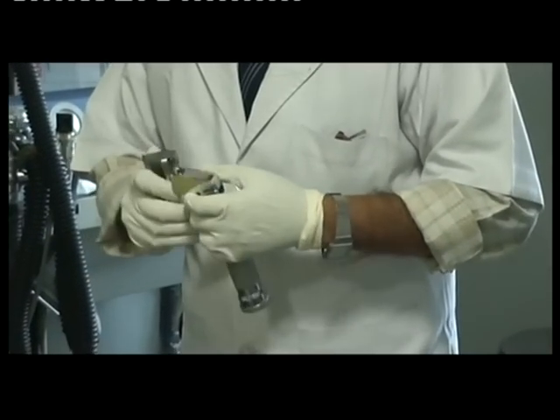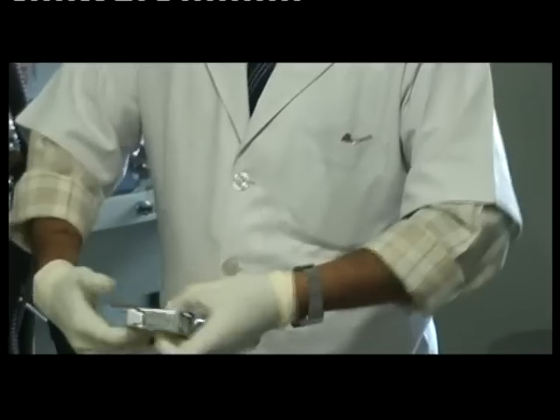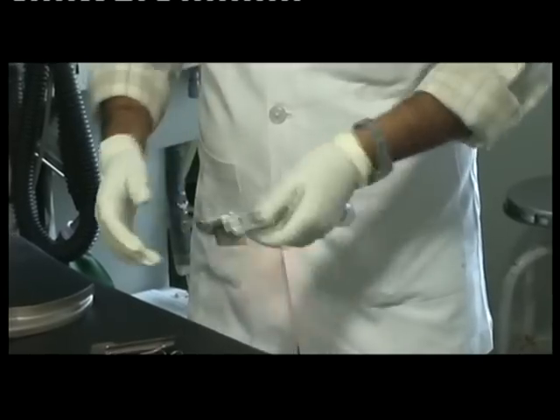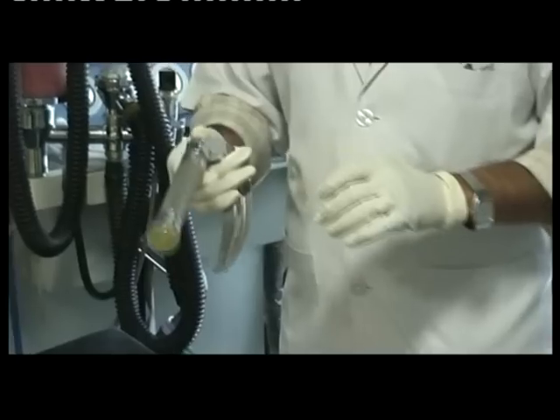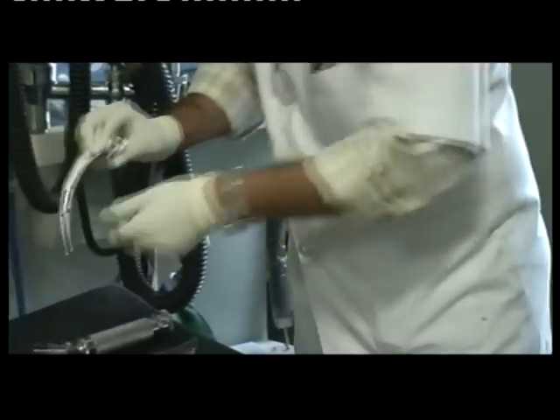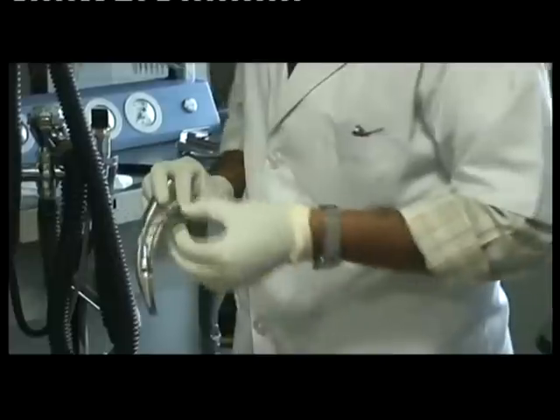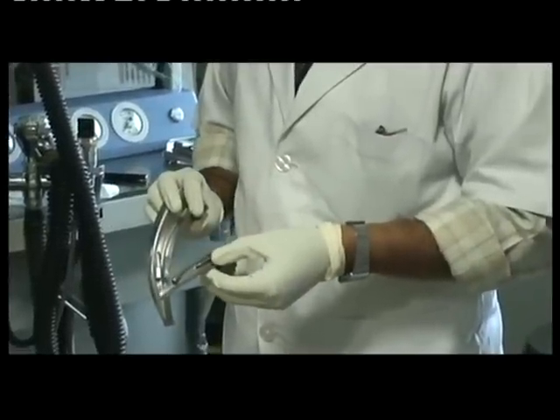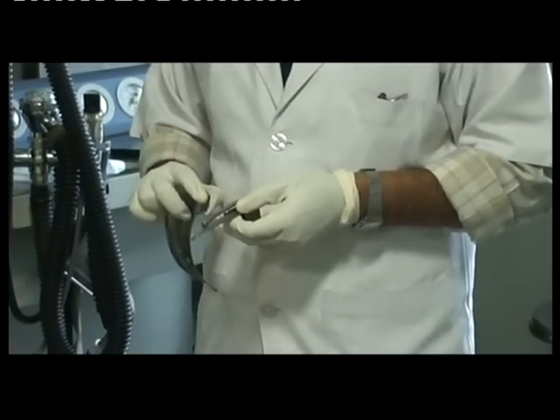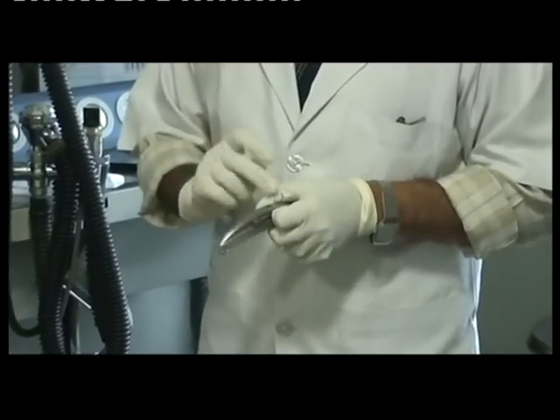When I attach this adapter to the handle, the angle has changed and has become acute, which is sometimes useful in difficult cases. The tongue of the blade can be curved or straight, as in this blade of the laryngoscope. This straight blade is useful for laryngoscopy in infants and neonates, while this curved blade is mainly used in adults.